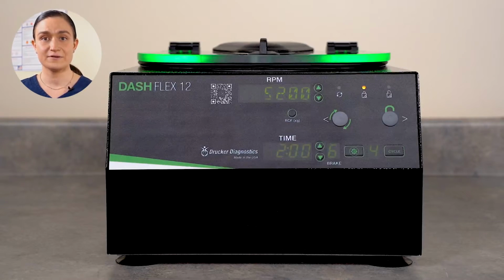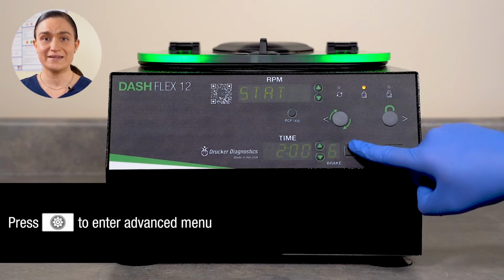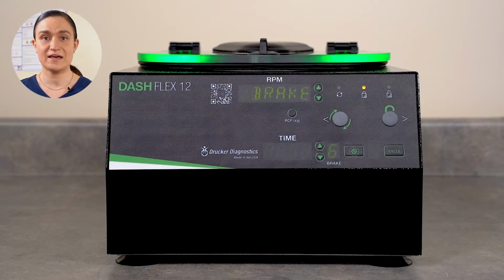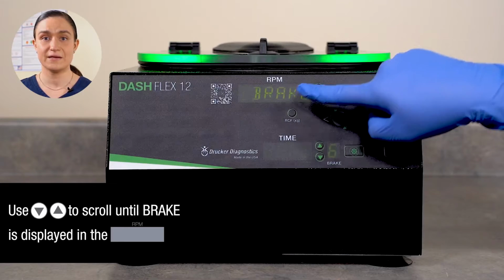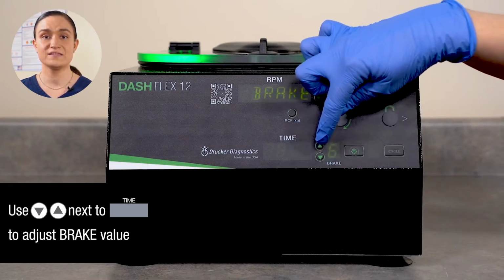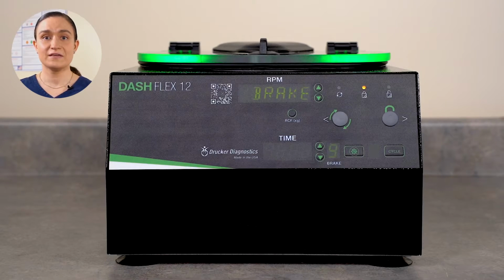To edit the brake value as well, once your time and RPM values are adjusted, press the menu button to enter the advanced menu. Various advanced menu options are now shown in the RPM screen. Use the up and down arrow buttons next to the RPM screen to scroll through the options until brake is displayed in the RPM screen. Use the up and down arrow buttons next to the time display to adjust the brake value. A brake value of 0 means no braking during the deceleration process, and the brake value of 9 means maximum braking during deceleration.